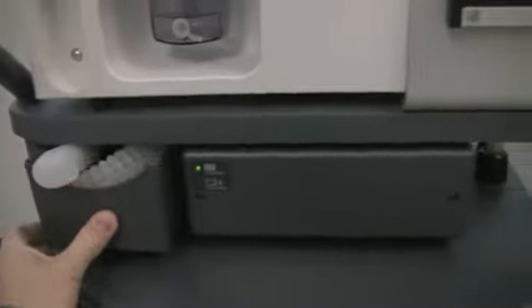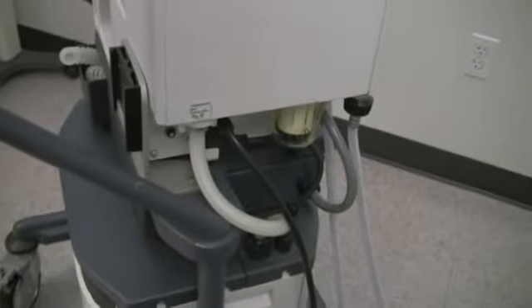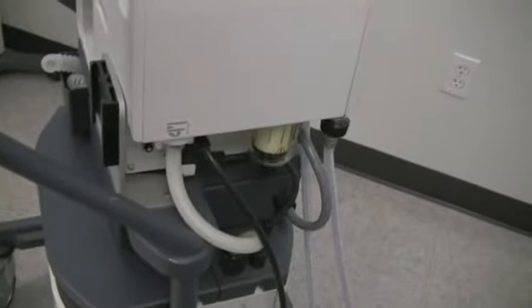A little drawer for any supplies we may need. On the right side of the machine down here, you can see that's where our air and oxygen inlets come in. This one has a few extra hoses and cables there because actually the power goes to this side as well.